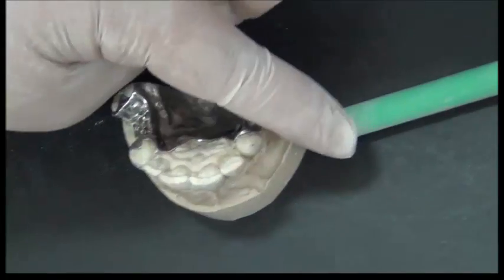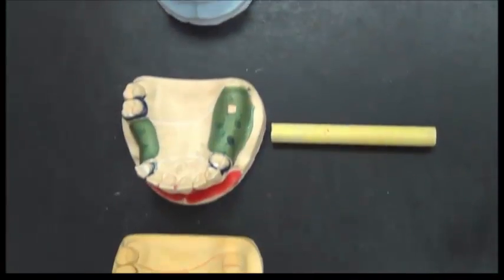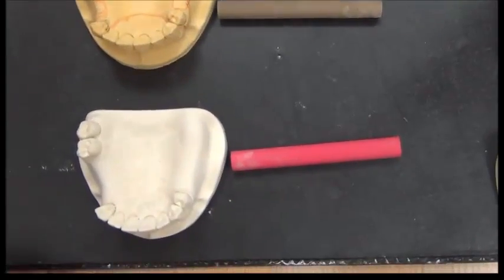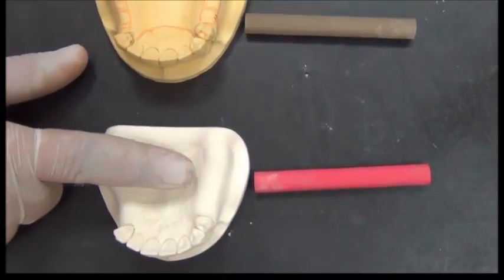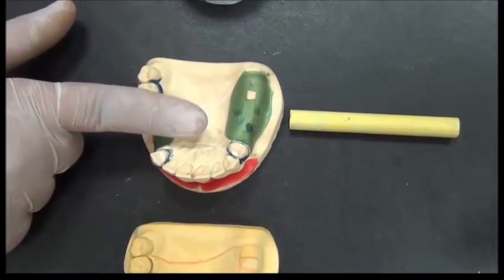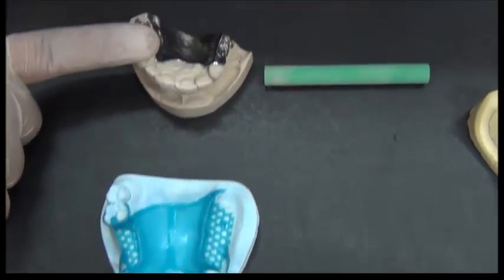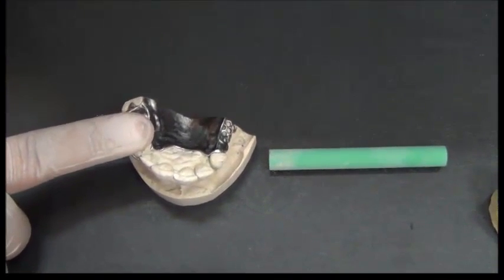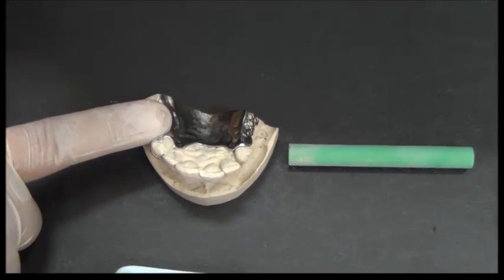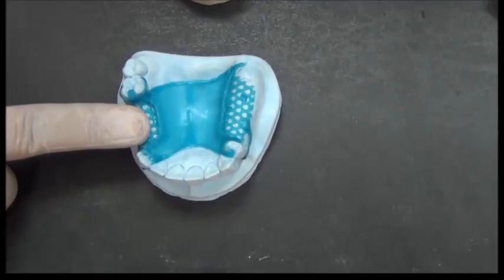So this is optional, but these are the main points where we do the surveying. Once more: an initial survey, a final survey for the design, wax trimming for parallel blockout, and maybe for interferences, optional if there are soft tissue interferences that might interfere with the acryl. The refractory cast does not have any surveying step.